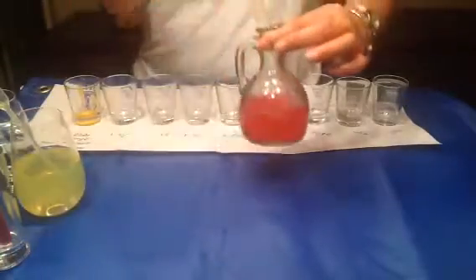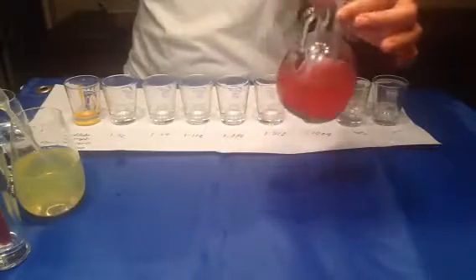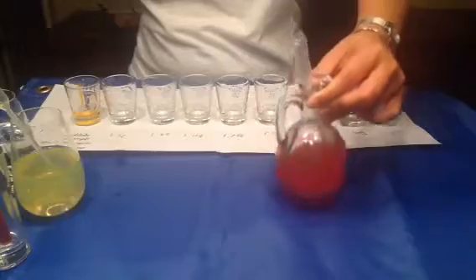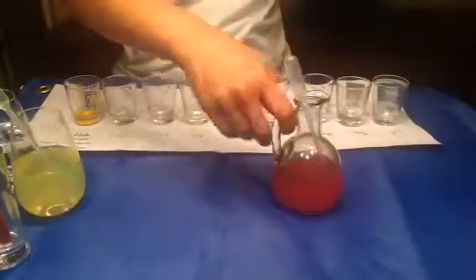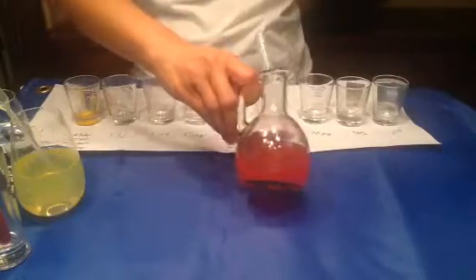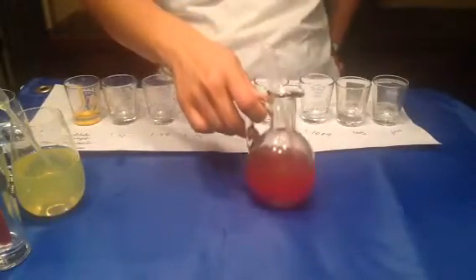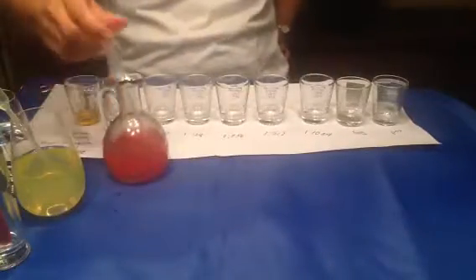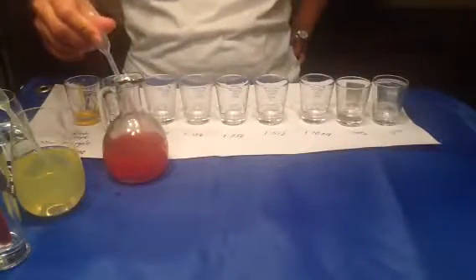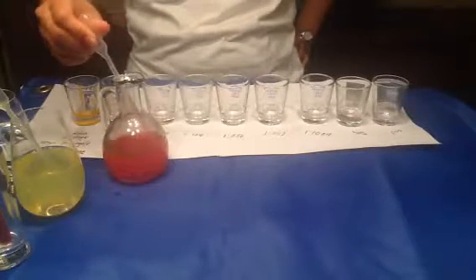Now I'm going to add 500 microliters of 2% red cell suspension. The color is acceptable for a 2% red cell suspension, and this is O cell. O cells don't have any antigen on the red cell, so that's why we use O cells to test. So transfer 500 microliters to each dilution.